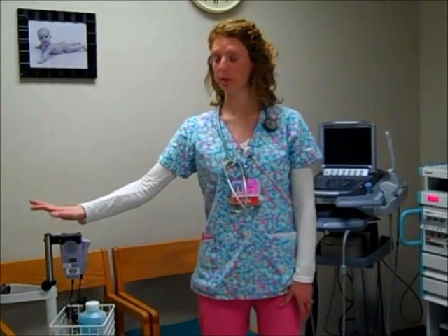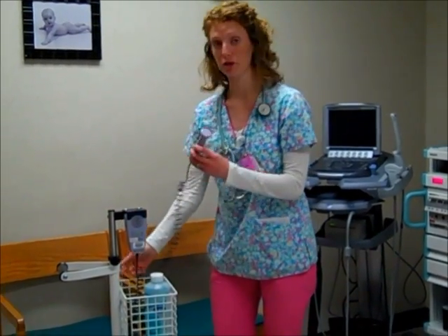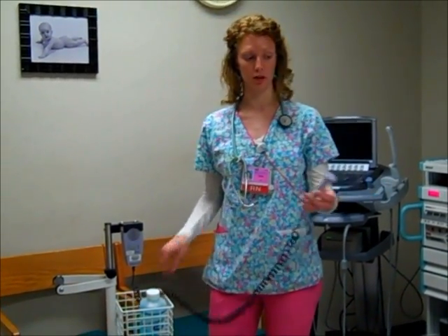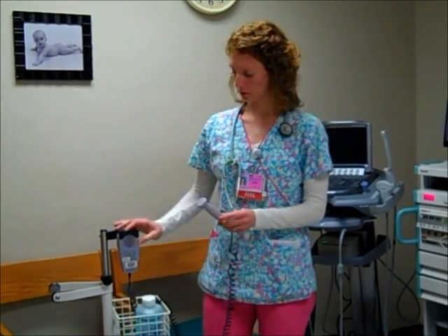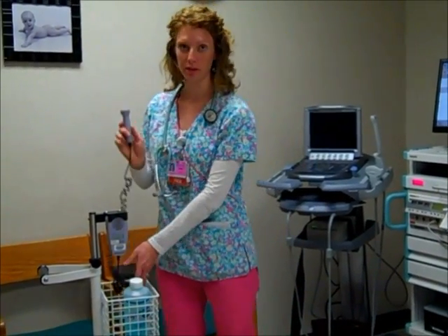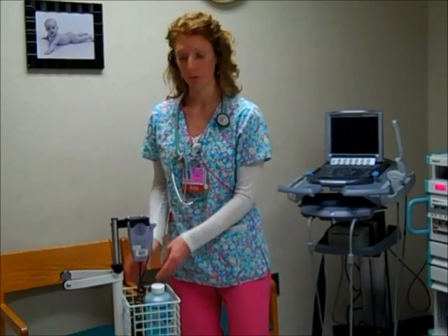So one of the tools that we keep in the triage room is something called a Doppler. And this machine is to measure or to monitor fetal heart tones. You would put a little bit of lubricating jelly on this, turn it on, and then place it on the lower abdomen, and you can pick up fetal heart tones. This is especially good if someone's in their first or second trimester, or also if they're in the birth suite and they're having a low intervention birth. So we have this Doppler to measure fetal heart tones.